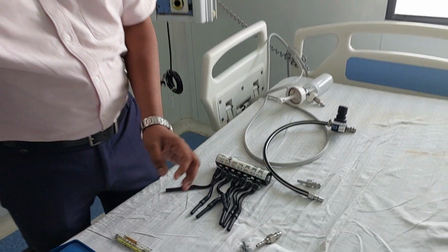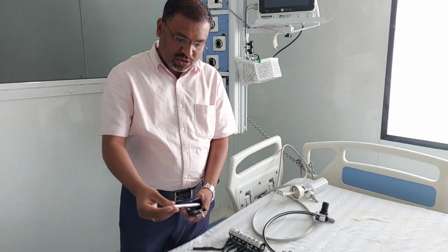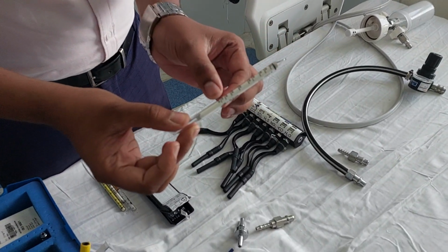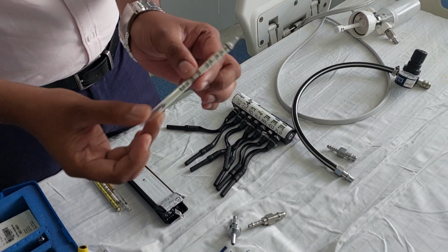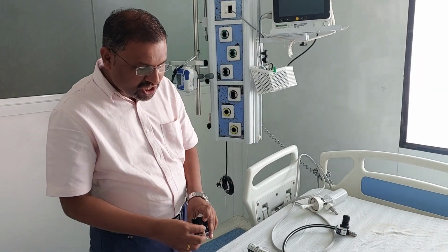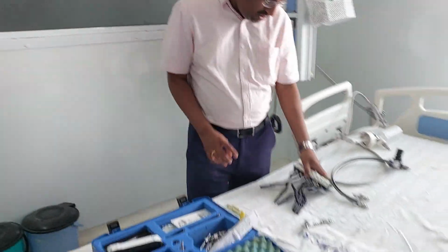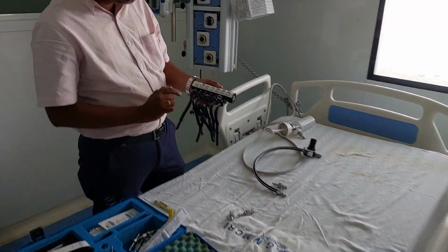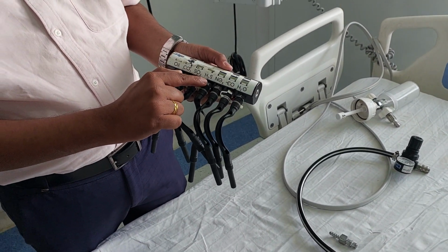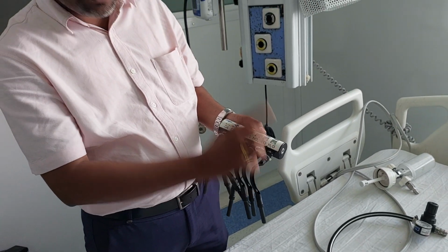For that we are using such kits the company has provided. These are the tubings for checking the oxygen quality. They have given the ppm parameters, right? In such kits, the tube changes its color if there is any contamination inside the oxygen. So what types of contaminants are we going to check? Oil, CO2, sulfur dioxide, hydrogen sulfide, nitrogen fumes, carbon monoxide and water.